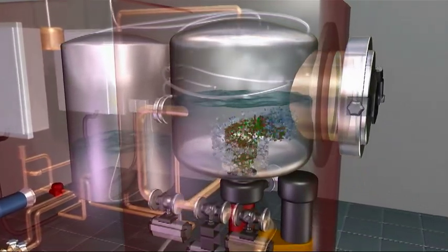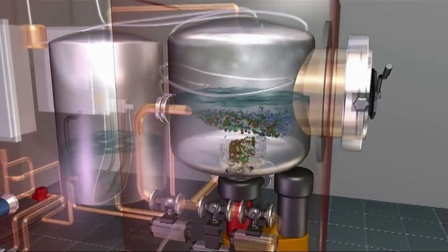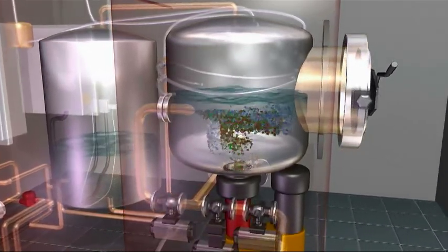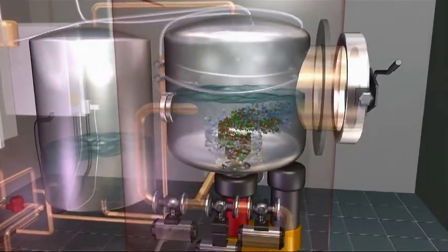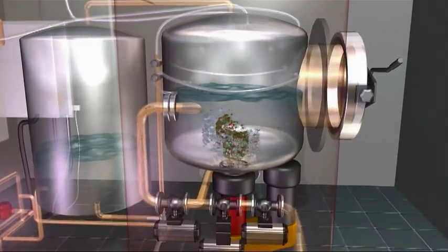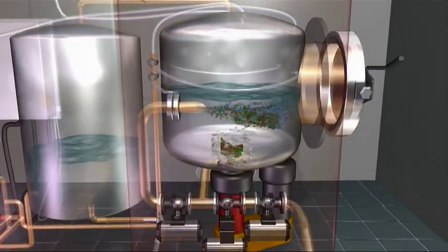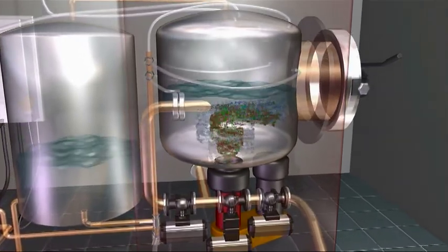The temperature in the tank increases to approximately 270 degrees Fahrenheit and is maintained for a time equivalent to 30 minutes at 250 degrees Fahrenheit, or about 6 minutes, to ensure complete sterilization.